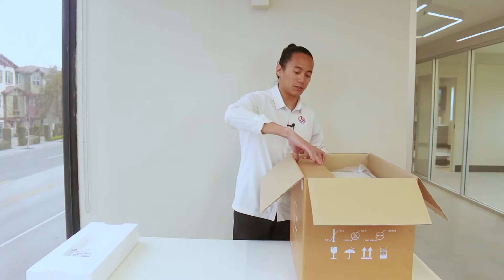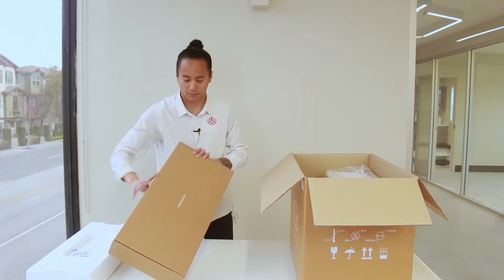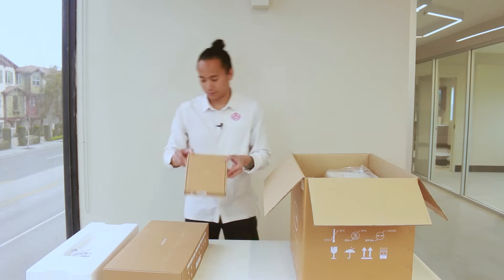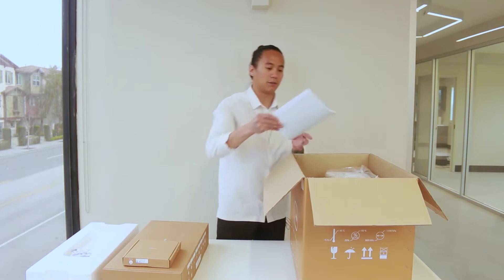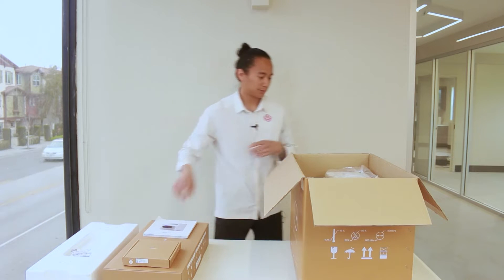We'll grab the first accessories kit here, and there will be a second smaller accessories kit. Make sure not to lose that. We will also have your quick start guide, and then it's just a scanner.